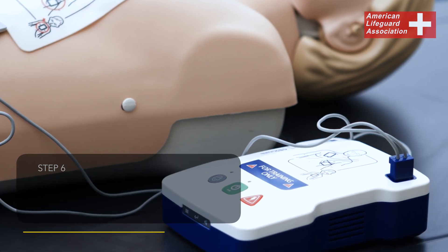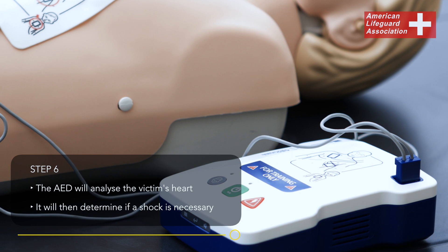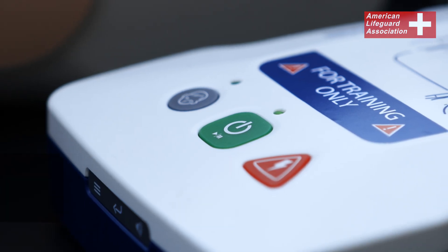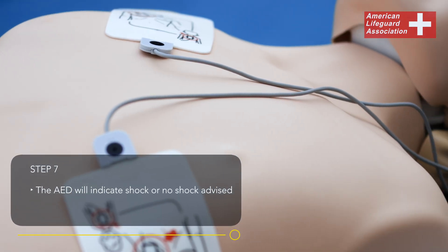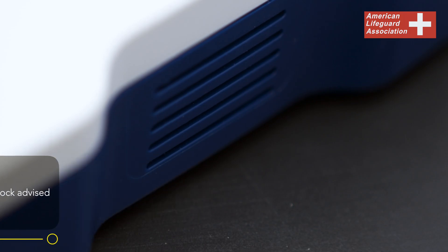The AED will analyze the victim's heart rhythm to determine if a shock is necessary. Based on the analysis, the AED will indicate either 'shock advised' or 'no shock advised.'